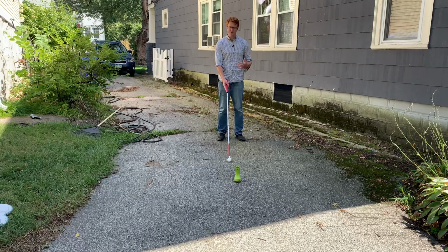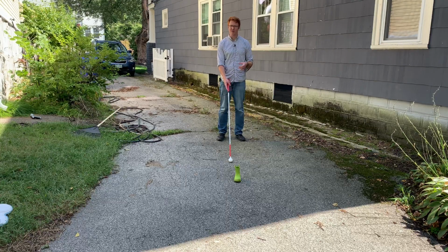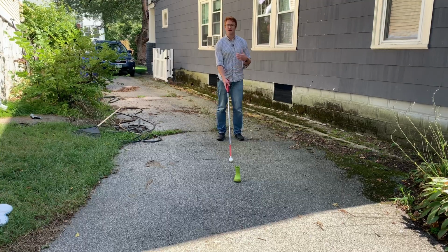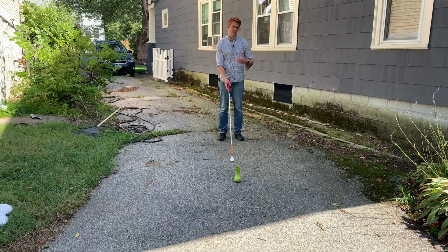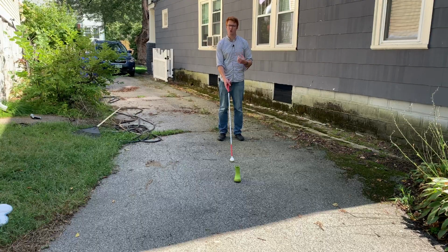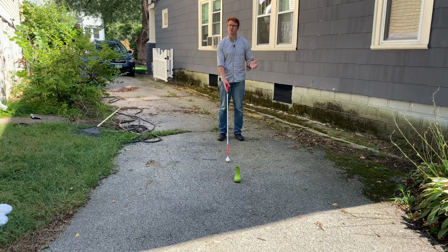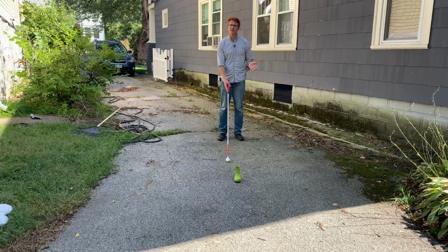All right, so for this demonstration, in front of me I have a little toddler boot. It's sitting on the floor. I'm holding out the cane in front of me. And I'm just going to demonstrate with a small object, or if it's a small hole in the ground or something small that can be a tripping hazard, the cane might not necessarily find it, because when you sweep the cane, it might go over the object.